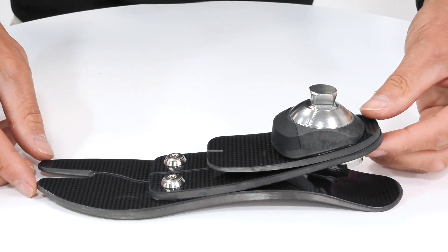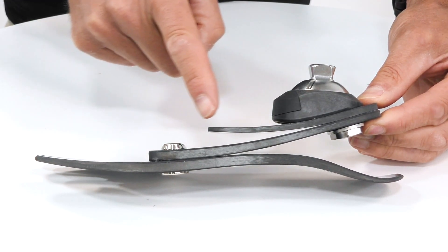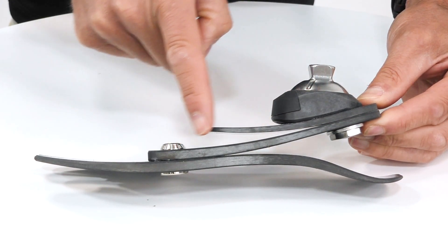Here is the Proflex LP, and you can see we have a top, middle, and bottom blade. Uniquely, it's this middle blade that has an interesting characteristic we call reverse tapered technology.